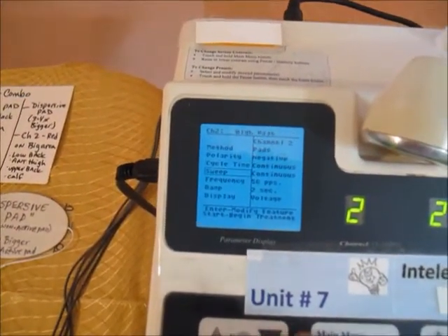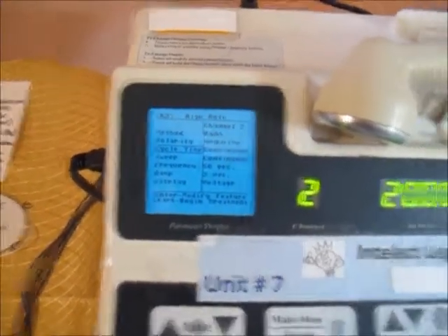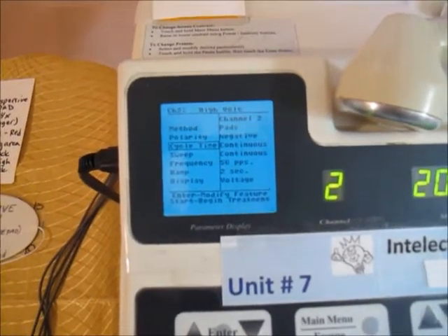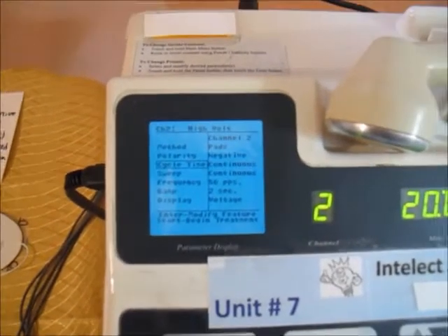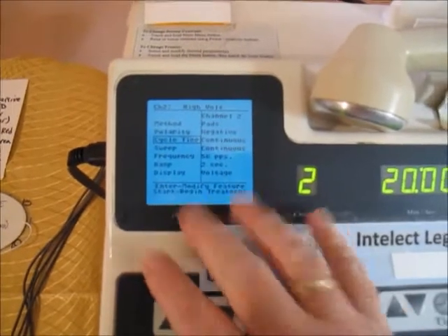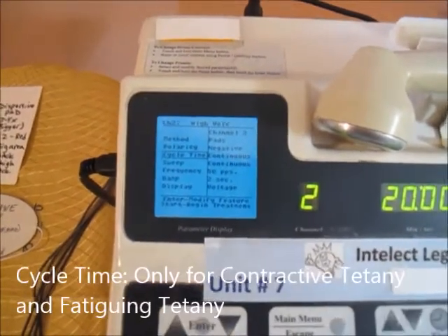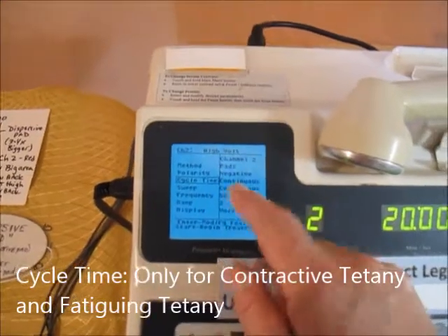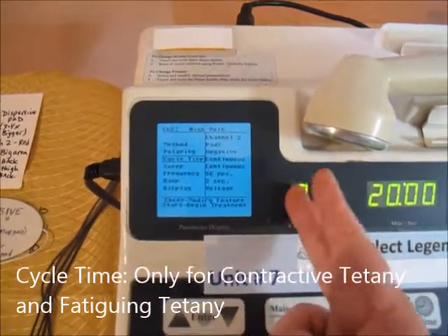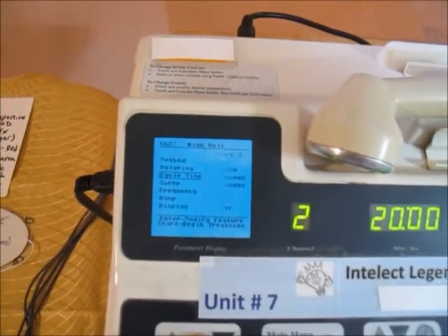Next, we look at cycle time. We don't use cycle time for every treatment — cycle time means there's an on/off phase where it contracts for a bit and then goes off. The only two modalities of the four motor nerve stim frequencies that need a cycle time are the contractive and the fatiguing.